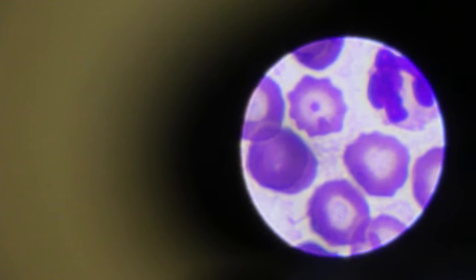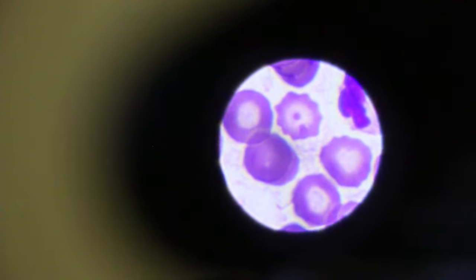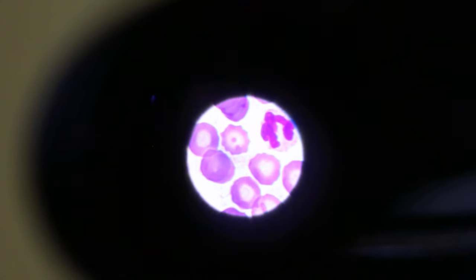Let's see. On the left, there's one. One. This is one. There's one. A white blood cell is beside it. Let's see whether I get a bigger view. Okay, here it is.